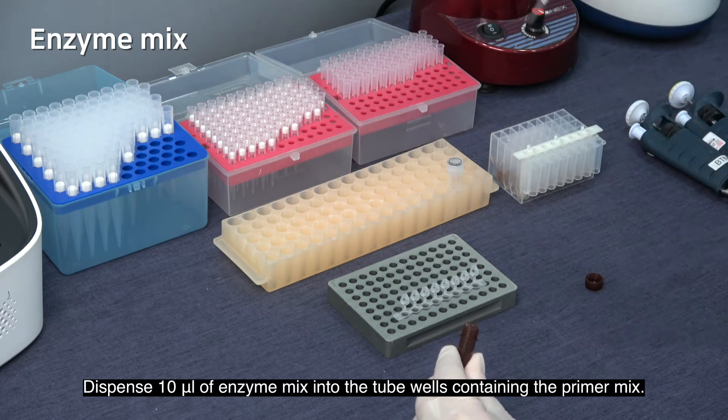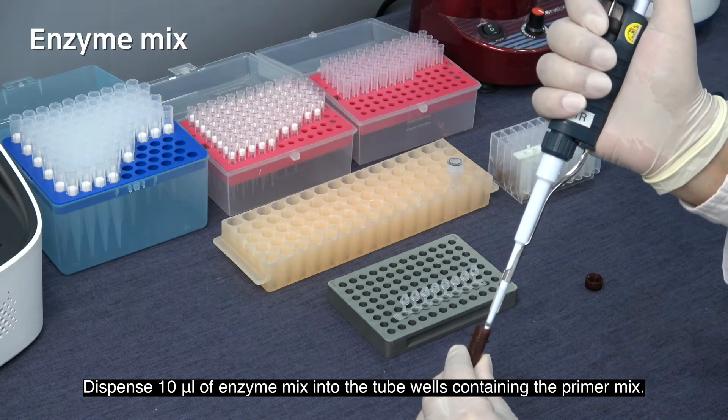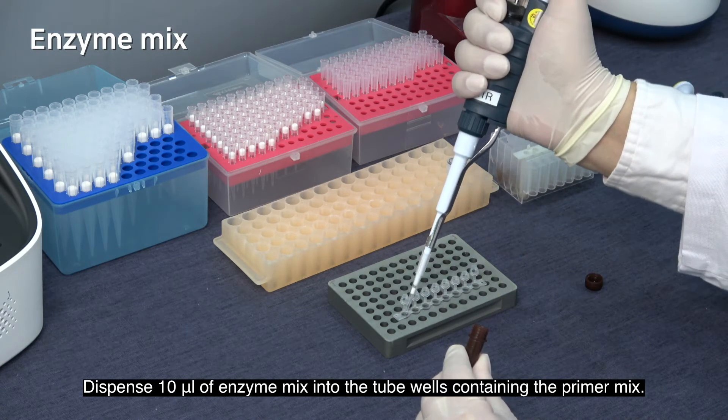Dispense 10 microliters of enzyme mix into the tube well containing the primer mix.